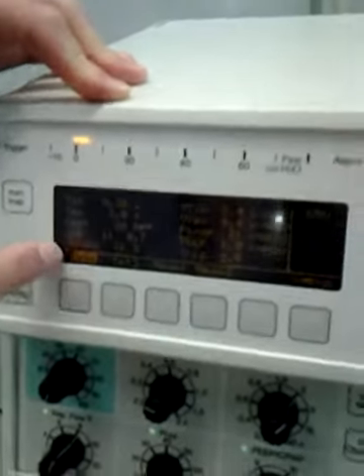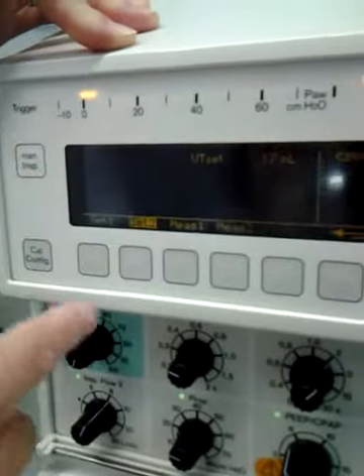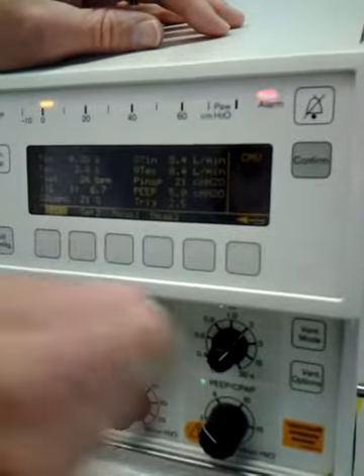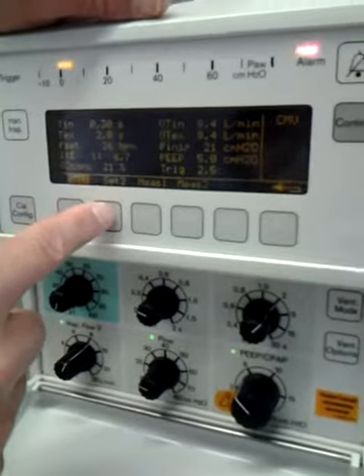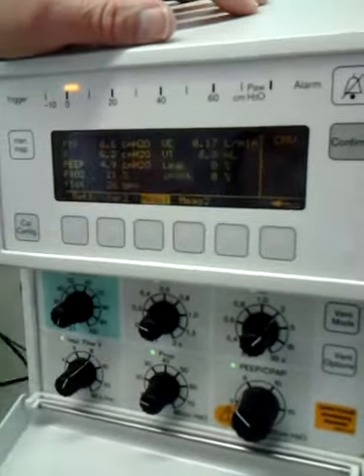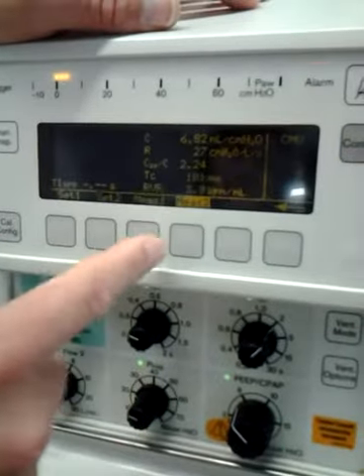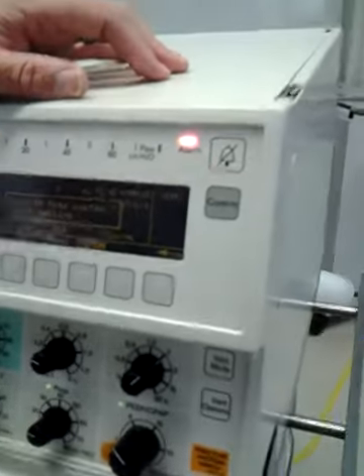Then your list is everything. Set 1: these are all the things that are set on that first run, and the second one is only the volume piece. So here is where you're adjusting these, you can see your rate change. When you're changing your I and changing your E is where you're going to see your rate adjustment. Okay? Then set 2, like I said, just the volume. Measured 1 is everything that's currently measured breath by breath. That's why you see the tidal volume here just changed a little bit. Everything can't fit on little screens, so the second screen will give the compliance and resistance stuff.